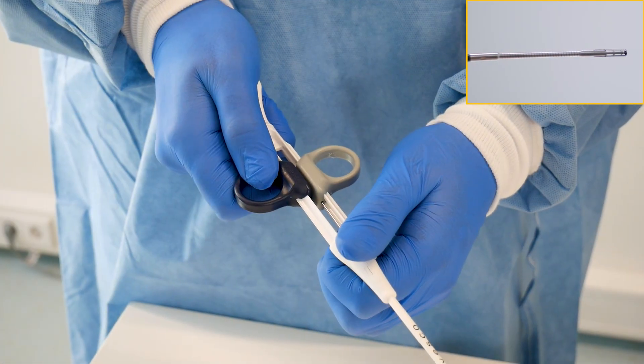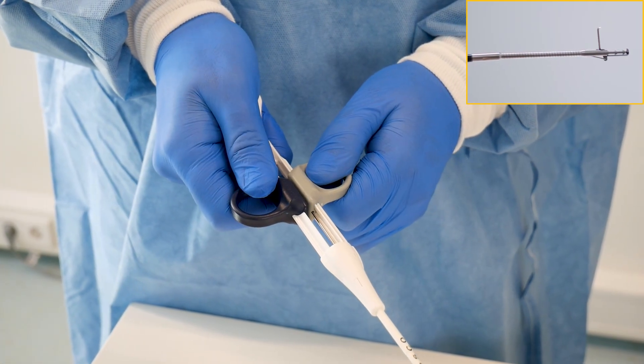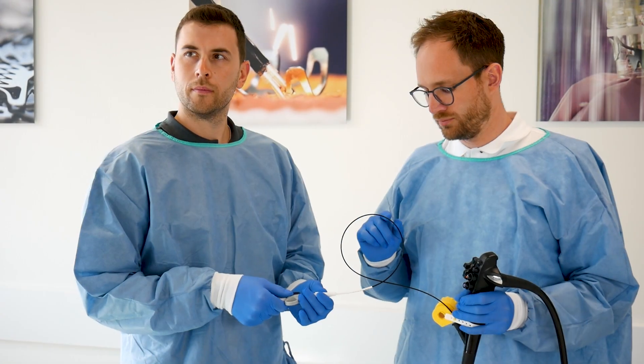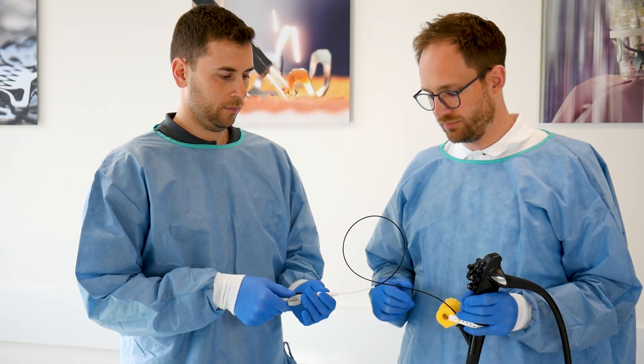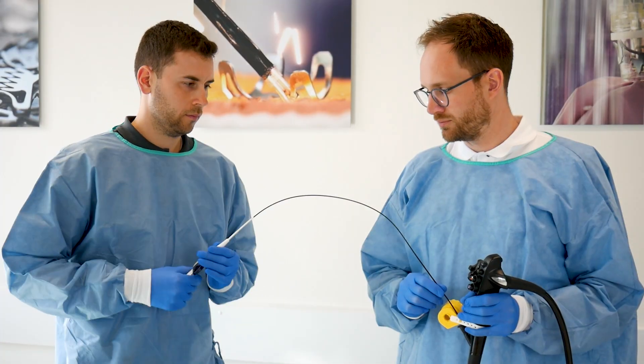The twin grasper is also operated with both hands for better control. The instrument must not be kinked or coiled during use to ensure good force transmission.